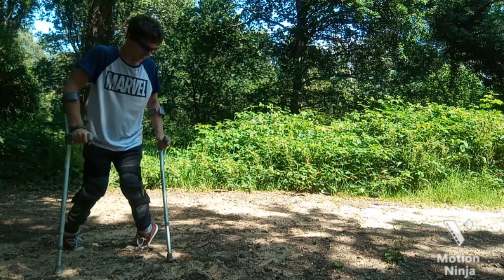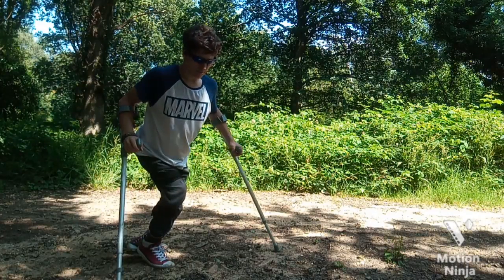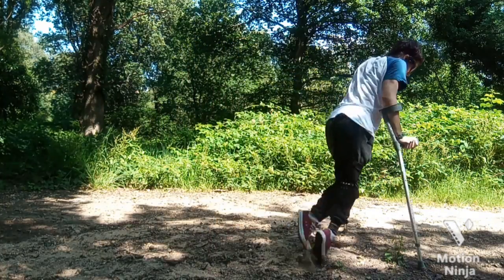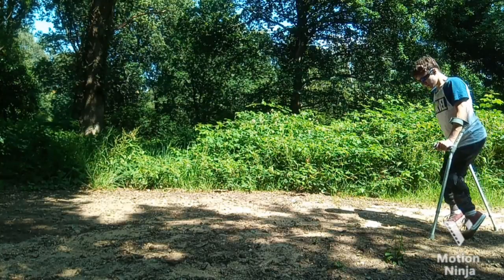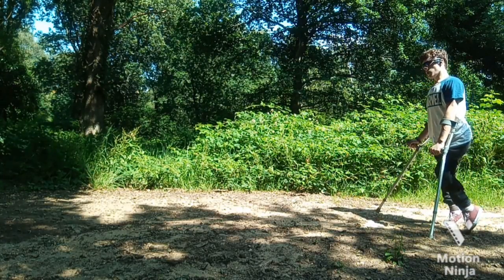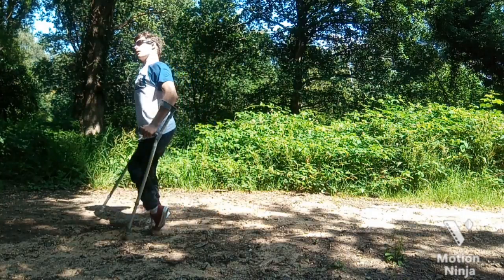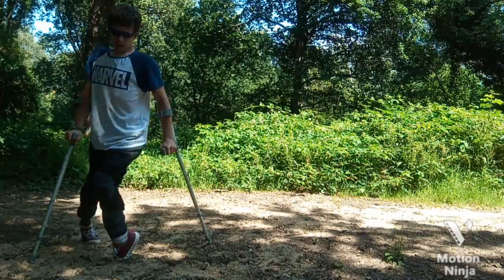And here my legs just kind of gave up for some reason. I had to kind of show you how I deal with that and why I don't do that, because I find it quite difficult to move my legs separately — which is why I move them at the same time doing just the swing, which again isn't how you're meant to do it, I don't think. Maybe if you've got broken legs you should, but I don't know. But yeah, that is how I use crutches.